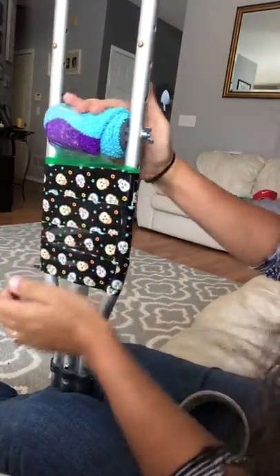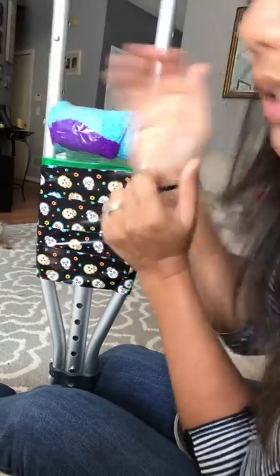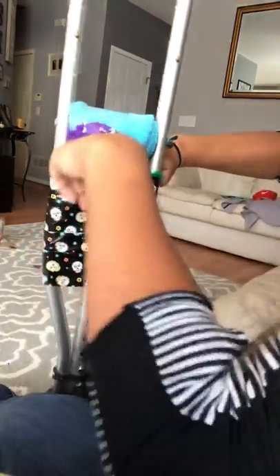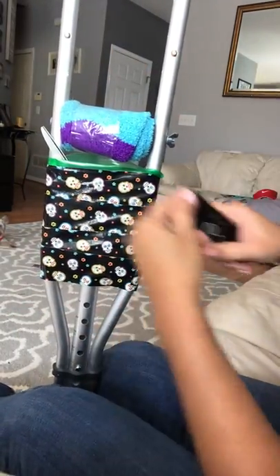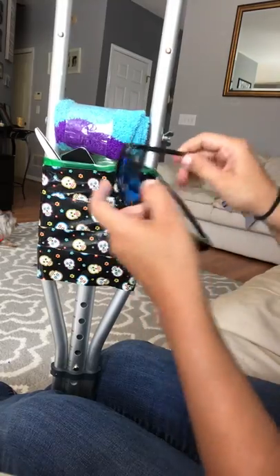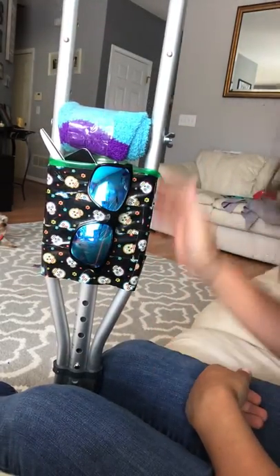Right here I added a sock because I was literally getting bruises in the palms of my hands. To complete this, I now have a little baggie where I can throw in a couple of things — the remote control, a pair of sunglasses — I've got a little baggie to tote around with me.